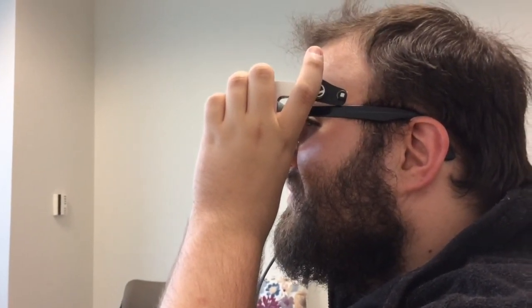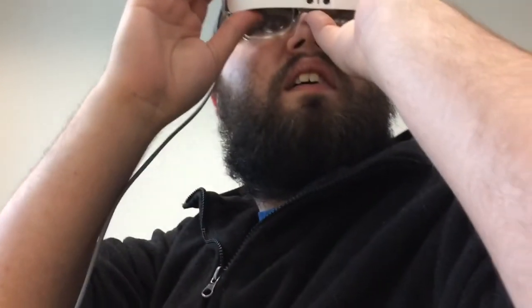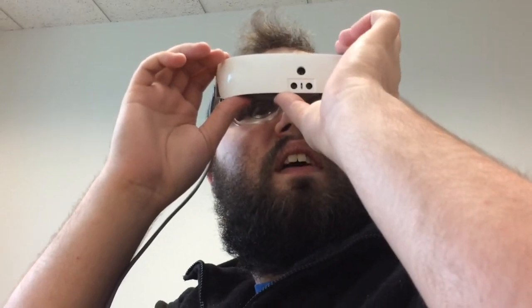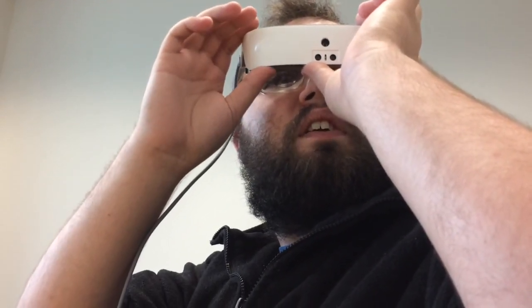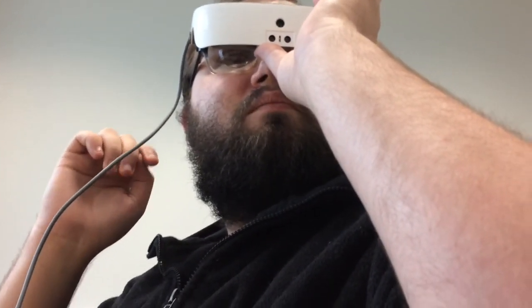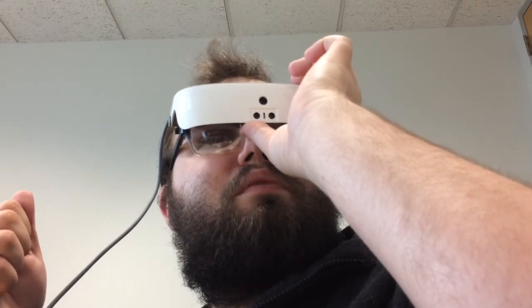The demonstrator asks the user to look over at Vicki, someone he knows, and has Vicki lower the camera so he can see her face. The user confirms he can see her face, saying he can see more than with his lenses, though it's still blurry in some aspects. The user wonders if there's a way to change the contrast and brightness.